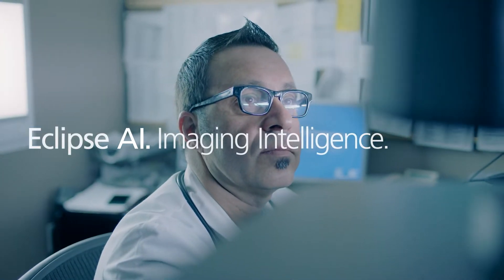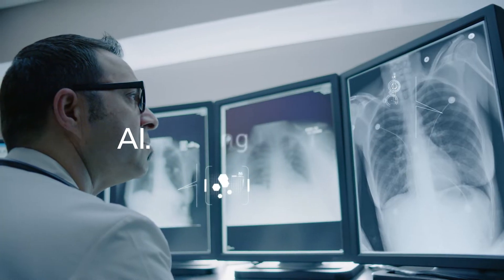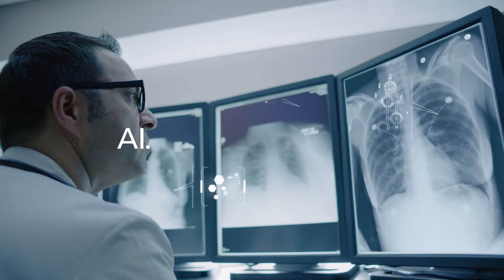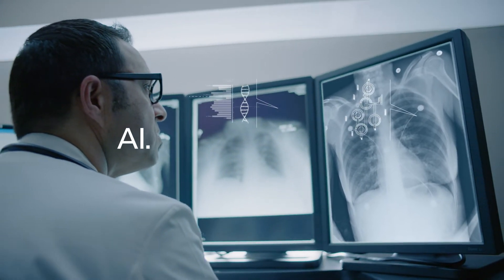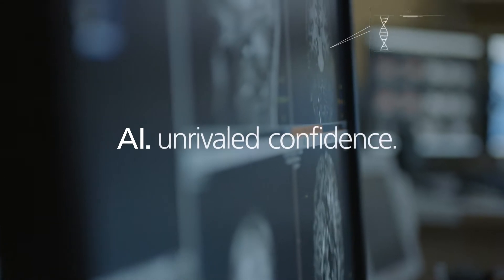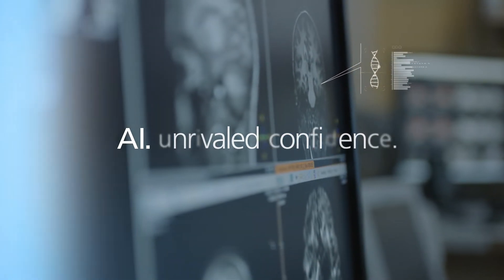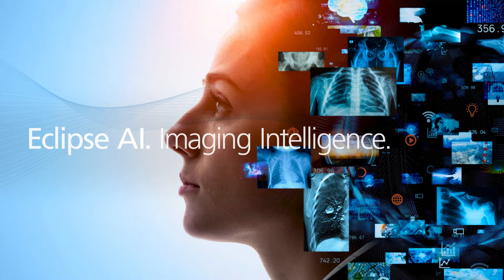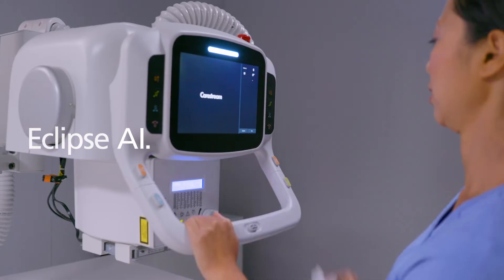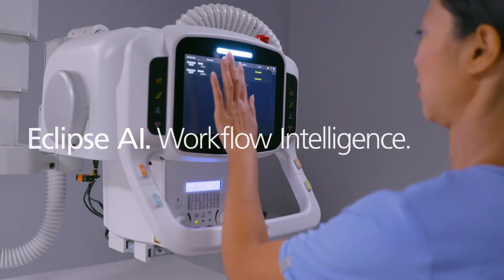Let's start with imaging intelligence, which leverages AI and proprietary algorithms delivering superb image quality and unrivaled diagnostic confidence.